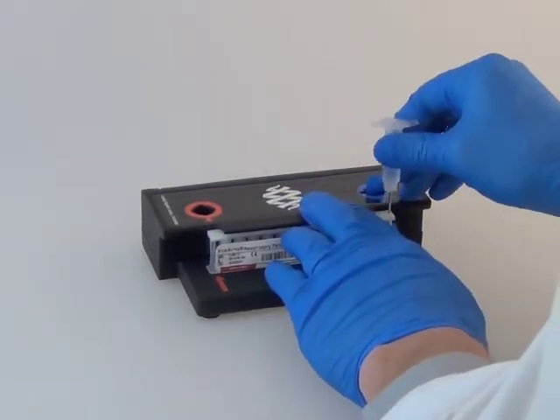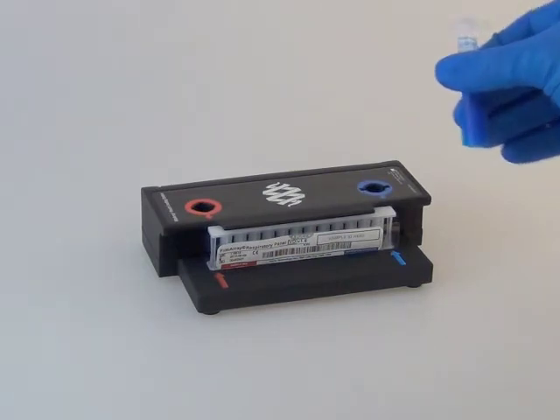Replace the hydration injection vial into the cap, and then dispose of the hydration injection vial.